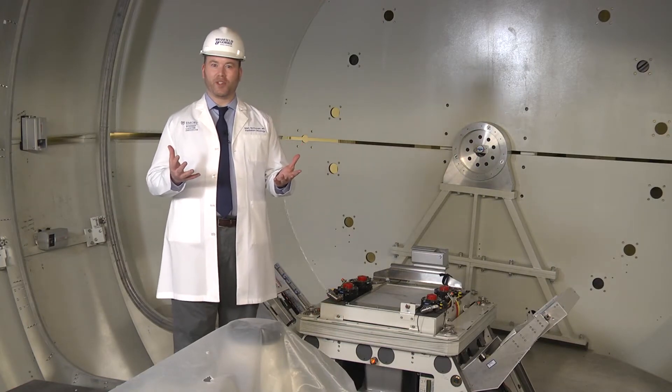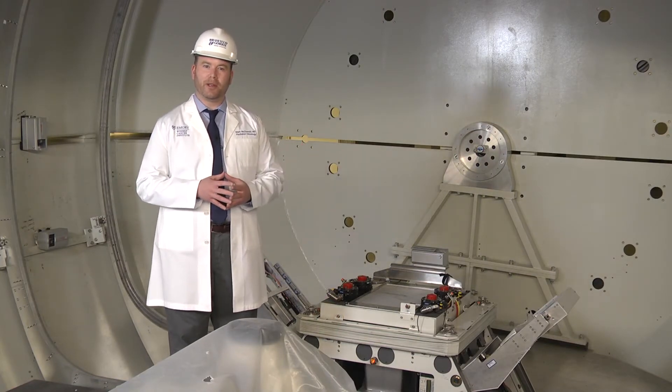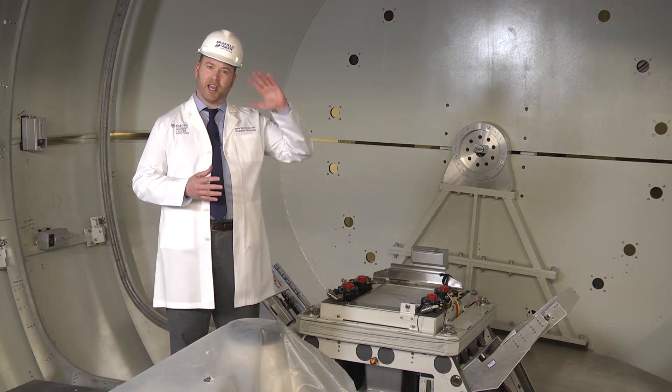We're inside one of the five treatment rooms of the center. When construction is complete, patients will be positioned on a table here inside of the gantry.